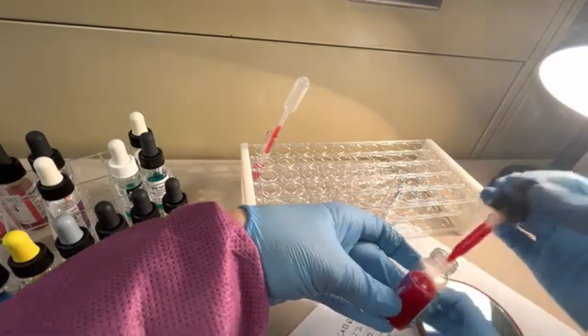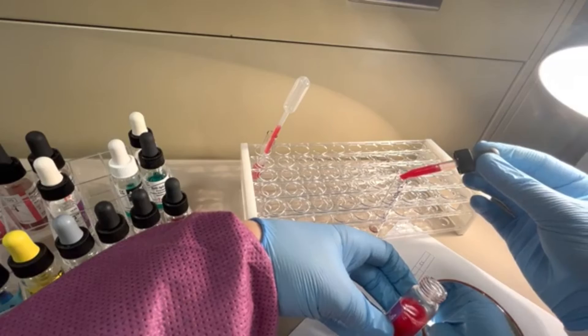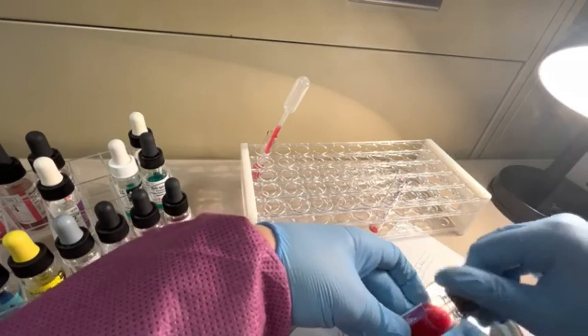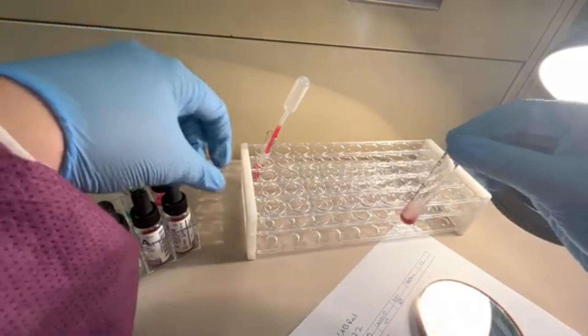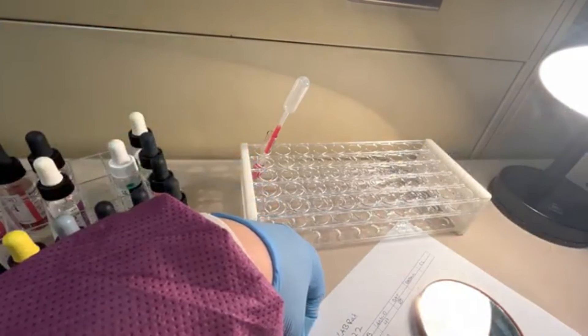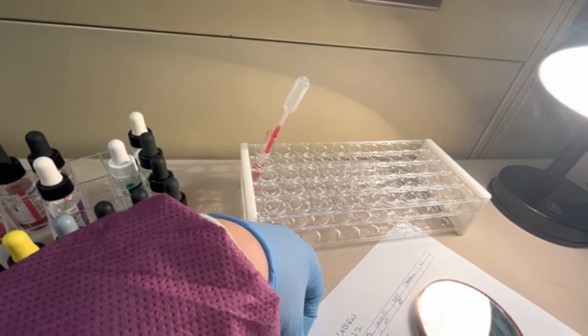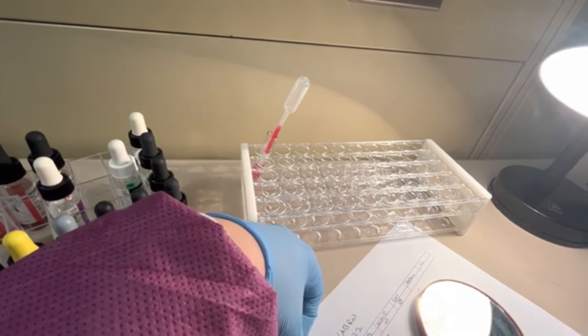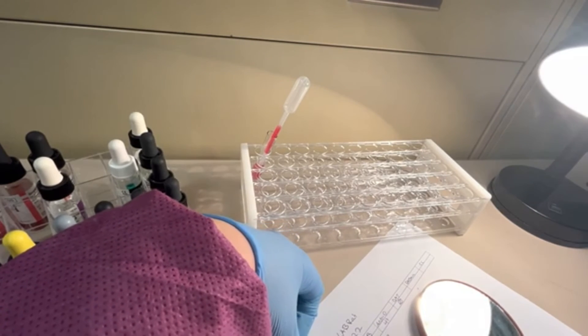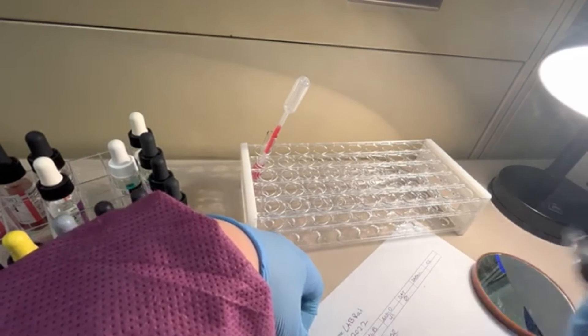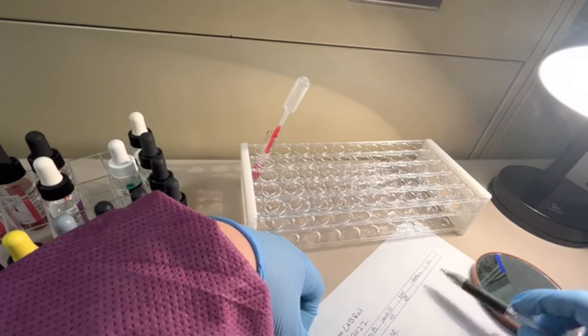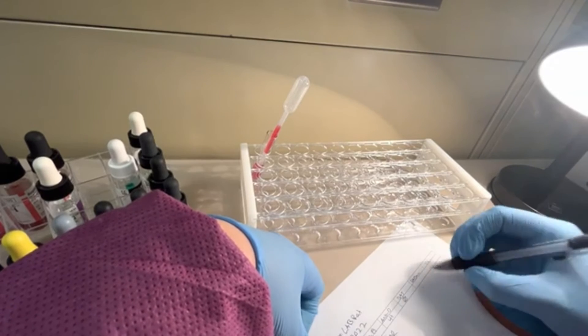Going to mix it up. And then I'm going to spin it for 15 seconds. And honestly, I'm just going to wait because why not? We'll wait for 15 seconds. So far, so good for this baby. They're A positive and it's looking like their DAT is going to be negative.